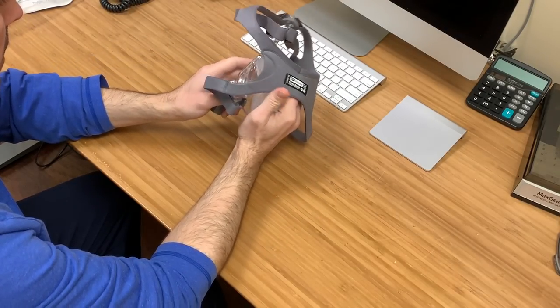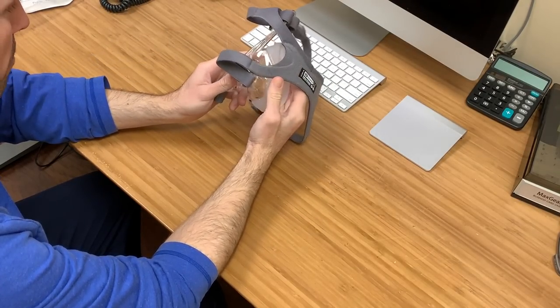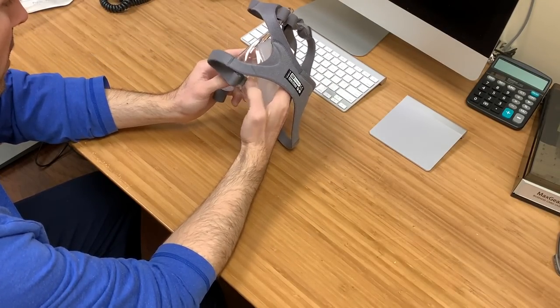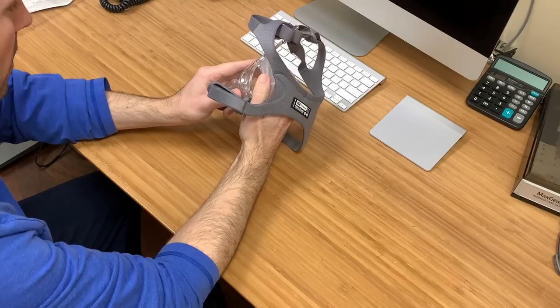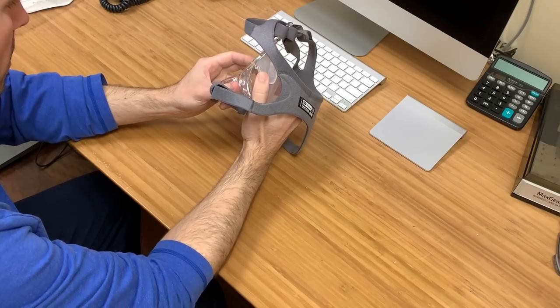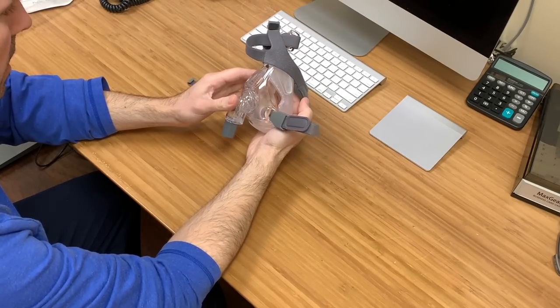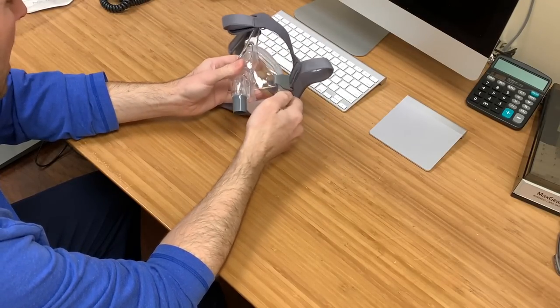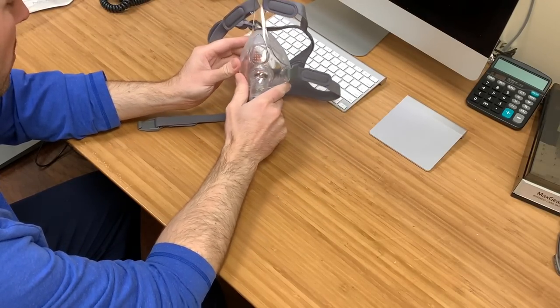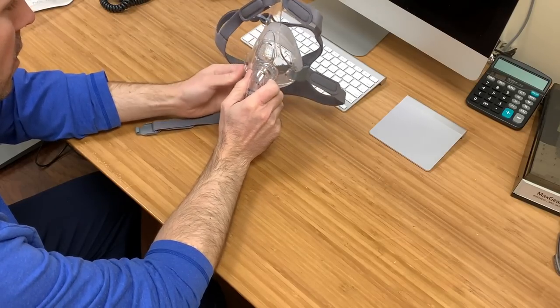We've had great success with the patients we've been setting up with this mask. I still use it to this day. It's definitely my top five masks of all time.